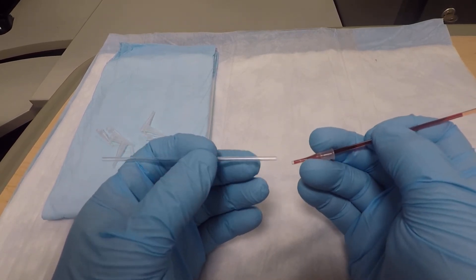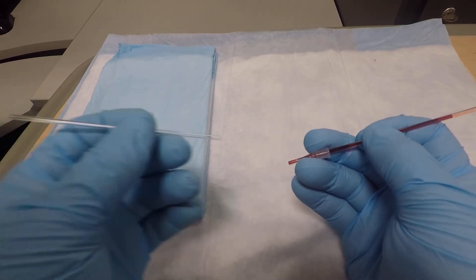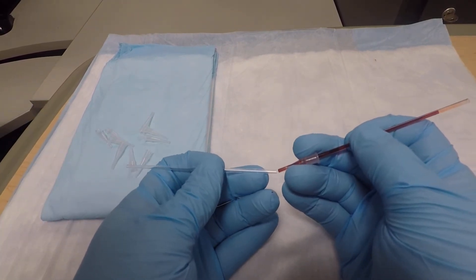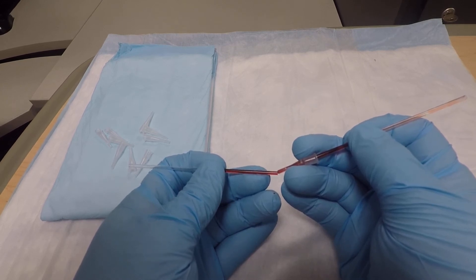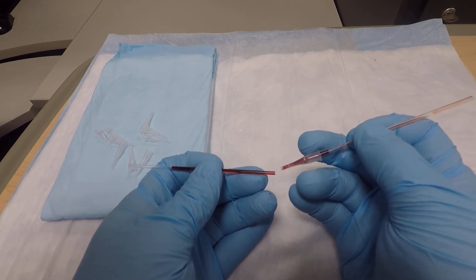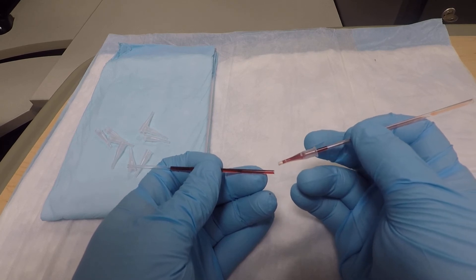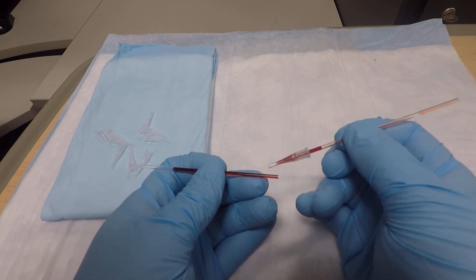It's best to keep a bit of distance between the two tubes when transferring, as long as you don't create a big mess. The blood will slowly go over, and if it stops for whatever reason, that's telling you there is a clot in the sample and it has done its job by not transferring it over.